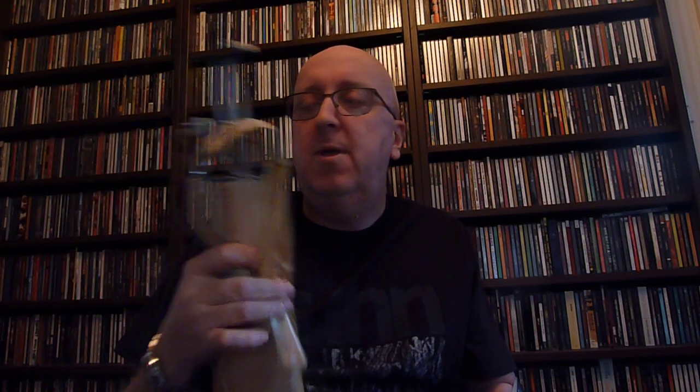I lost my arm in 1994. I had a cancerous tumour on my wrist, and then basically after a couple of months, once the swelling went down, I was offered my first prosthetic, which was not dissimilar to this little number. Proper state of the art, as you can tell. It's the old split hook, a design that's no doubt been around for 100 years at least.